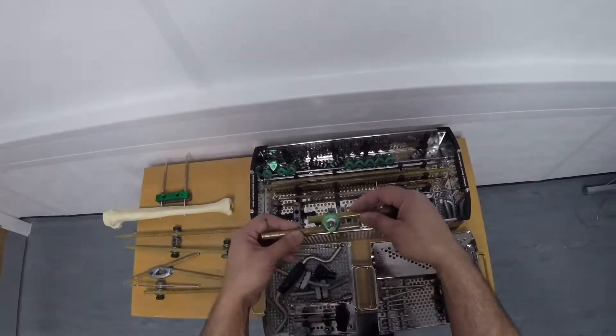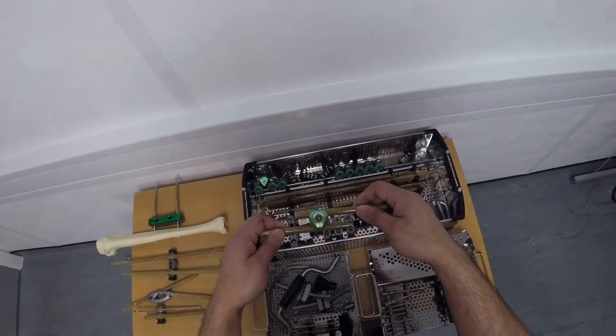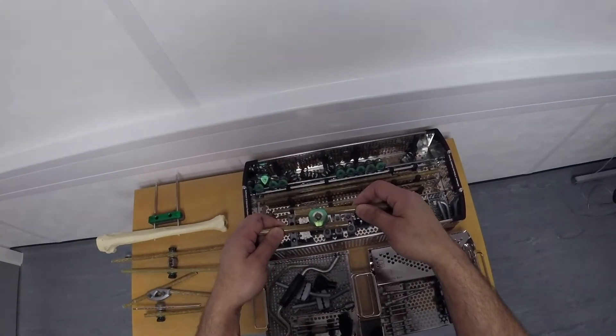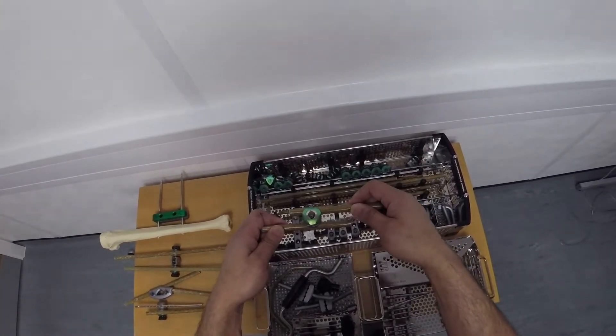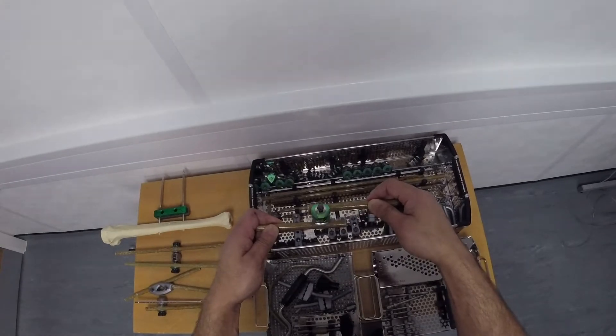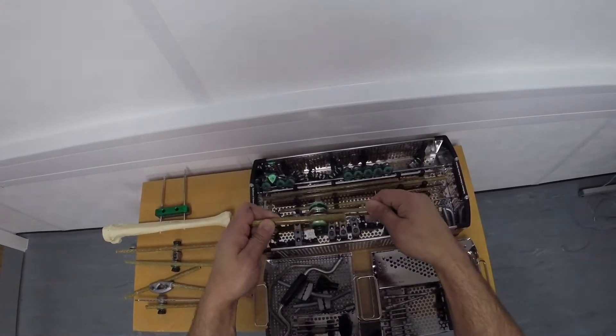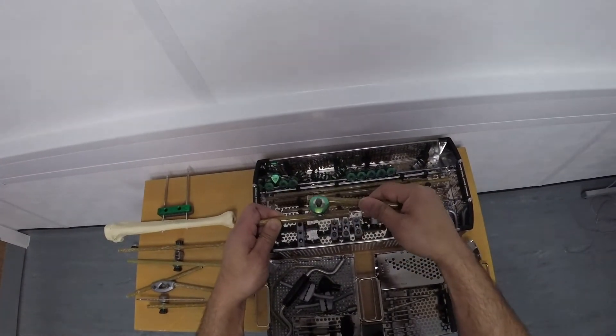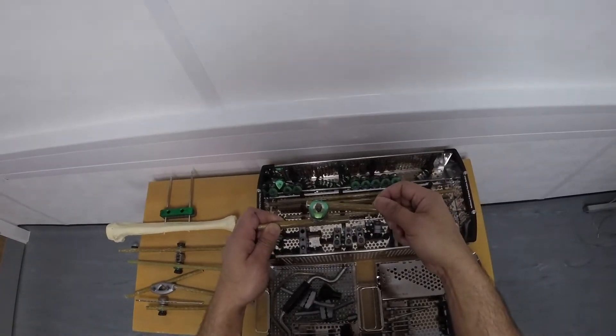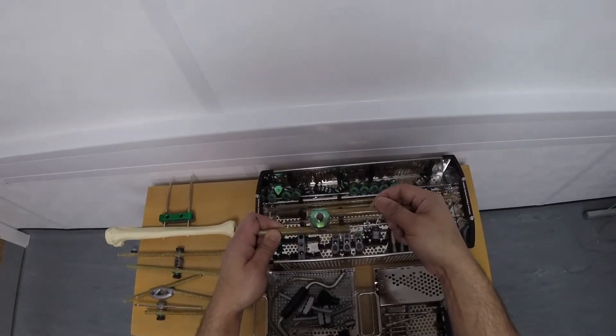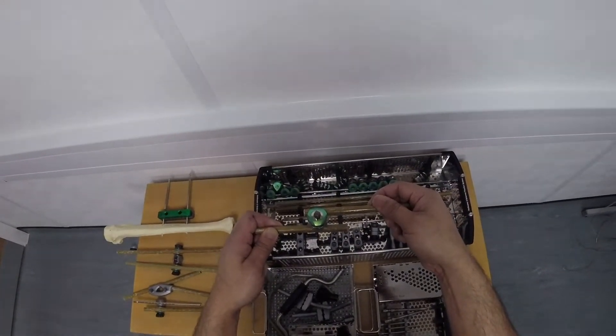The reason it's so flexible is because it can move in this direction, it can move in this direction, and it can move in that plane as well. So that makes it a universal joint which is very flexible.